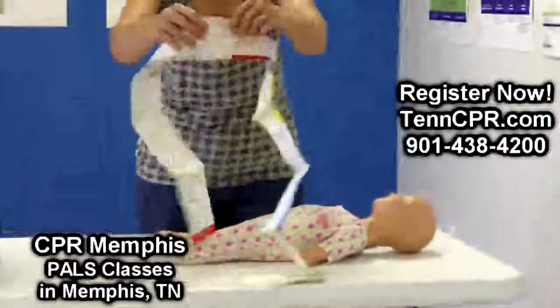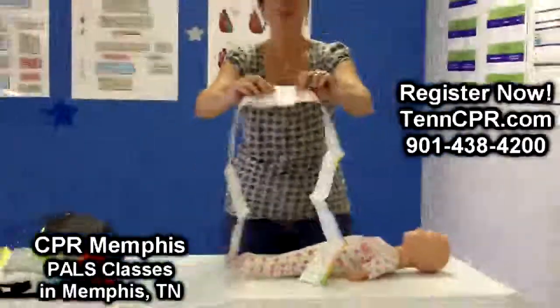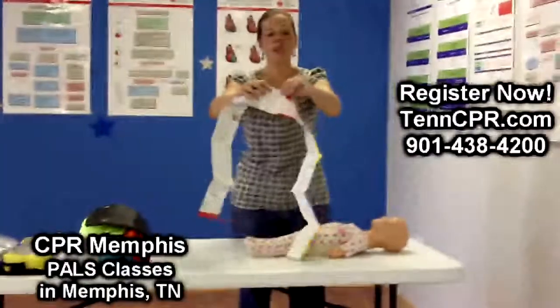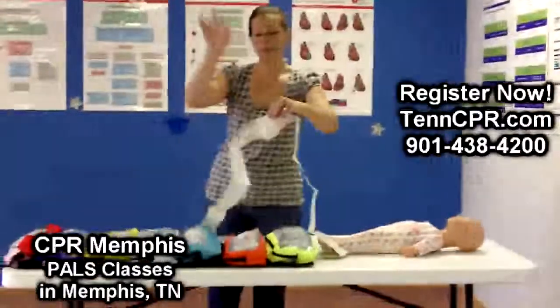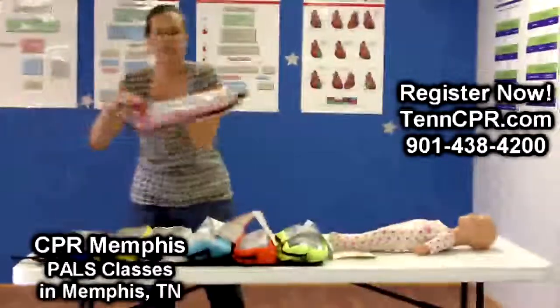Today we have the baby in the pink category, so he's estimated anywhere between 6 and 7 kilograms. As soon as somebody shouts out a color, then you can go over to your crash cart, your cupboards, wherever you have it, and grab the pink bag.